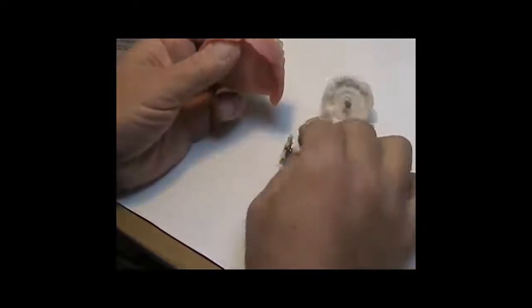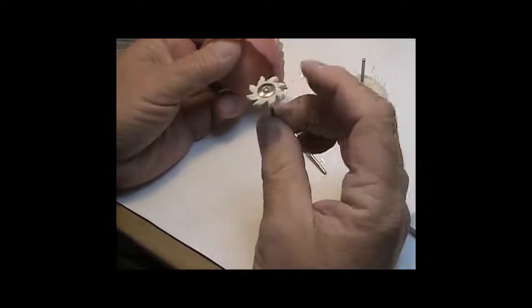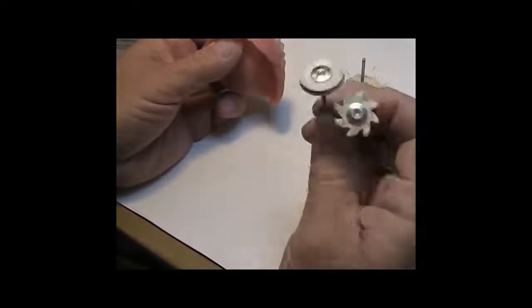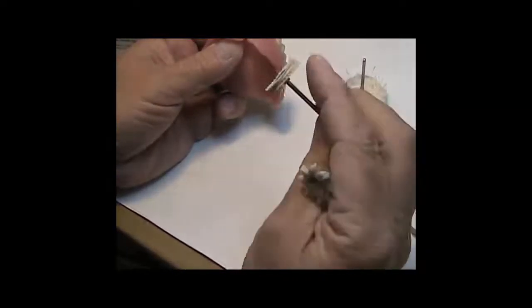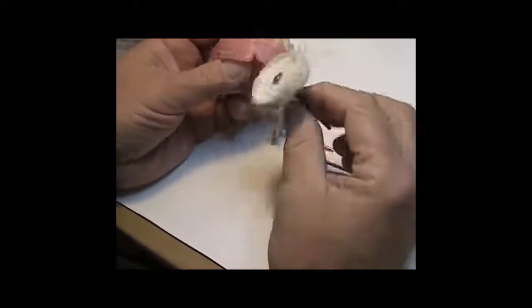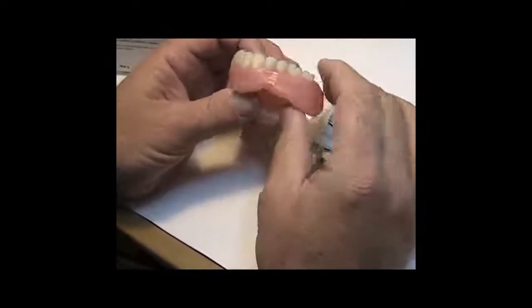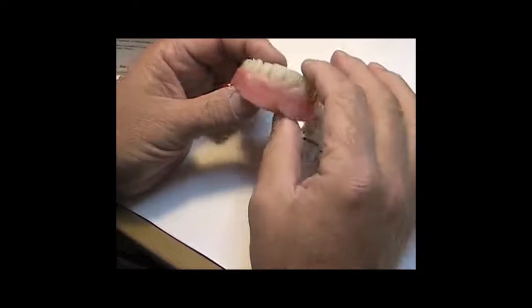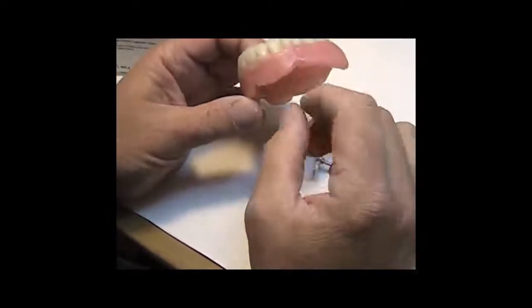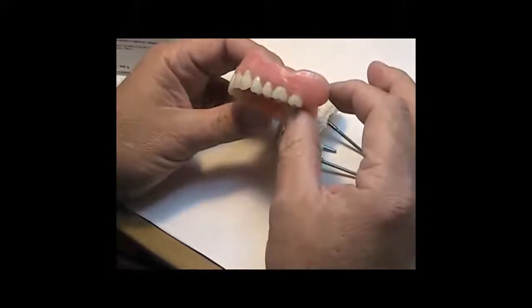So, star brush, goat hair star brush. Not the stiff, by the way. Get the soft. Goat hair brush, soft with the chamois center. And then this little rascal here, just a muslin buff. All for the handpiece. You can do it on a lathe, but I use the handpiece. That's just the way I do it. So, I'm going to do this, and then I'll come back. We'll take a couple pictures so you can see what the surface looks like.